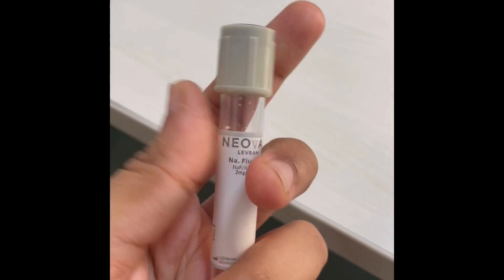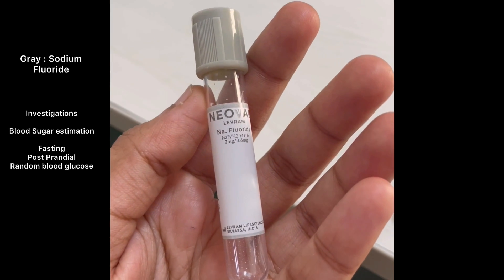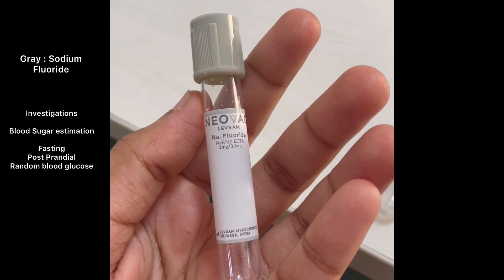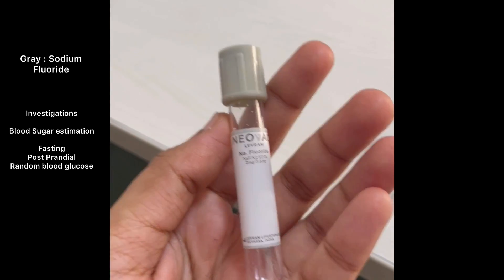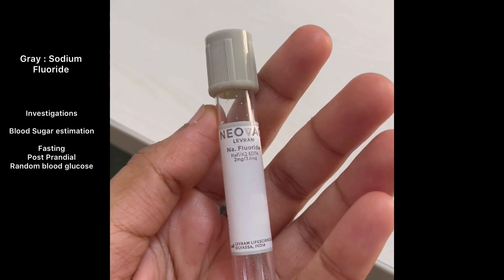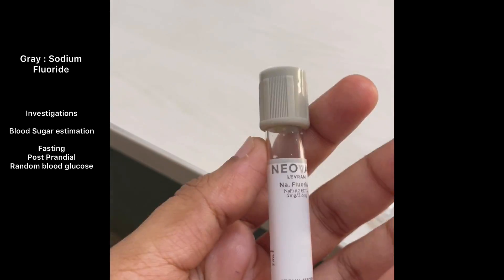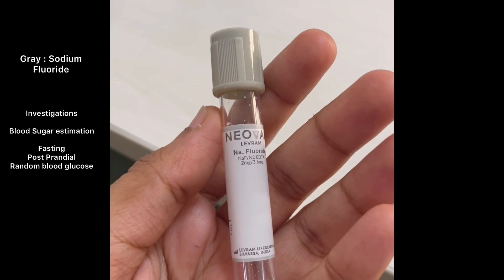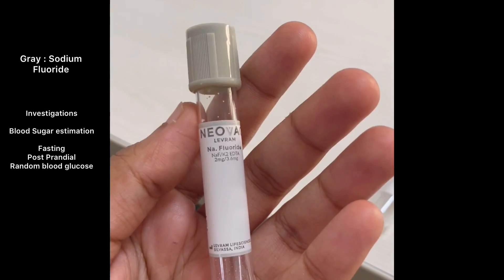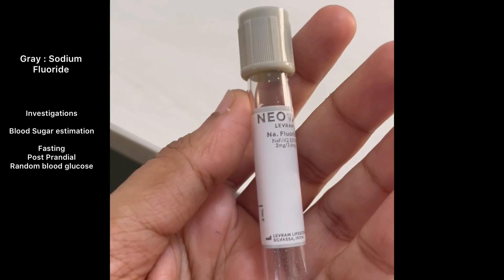The last one is the gray color tube, which contains sodium fluoride — sometimes it may also have oxalate. We use this when drawing blood for blood sugar estimation. The fluoride inhibits an enzyme called enolase in the RBCs. Normally, enolase is involved in the uptake of glucose by RBCs. If you draw blood into another tube like the purple one, you will get a wrong estimation of blood glucose because the RBCs will have utilized that glucose and the reading will be lower. To prevent this, fluoride inhibits enolase and gives you an appropriate estimation of blood sugar levels.